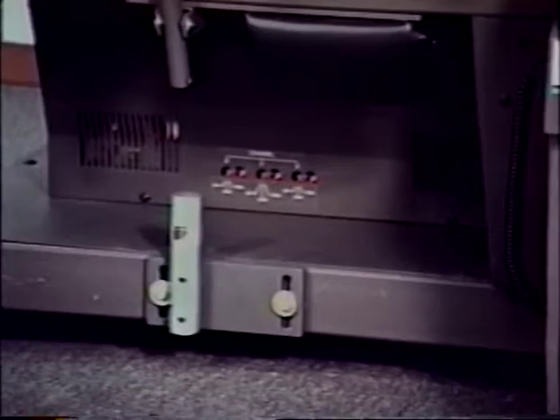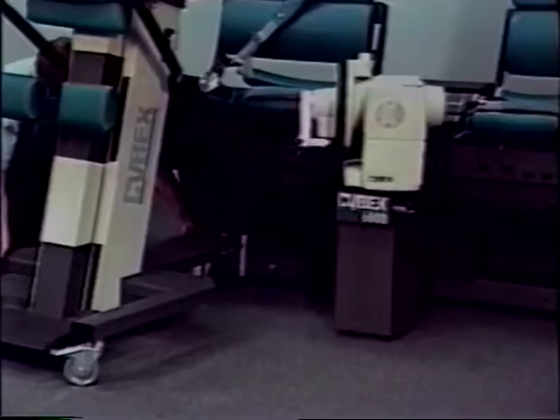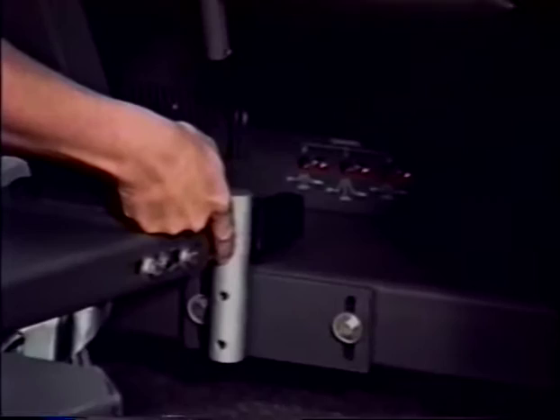Position the TEF modular component docking clamp against the docking post. Position the plate so that there is an even amount of grooved area on the post above and below the clamp. With a half-inch wrench, fully tighten the two hex head screws.